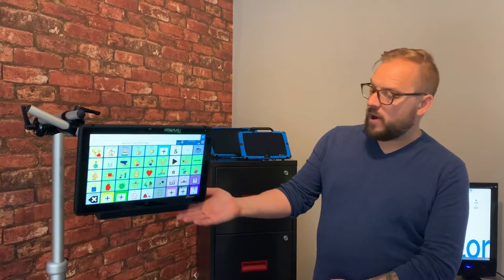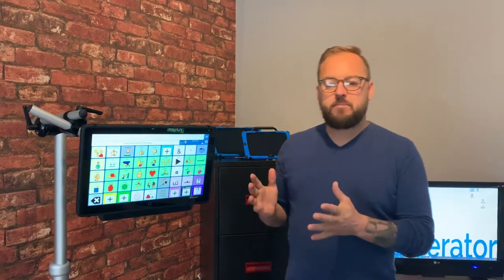It's the new Eye Gaze to go with the 1430 series. I want to show you the importance of setting it up correctly.